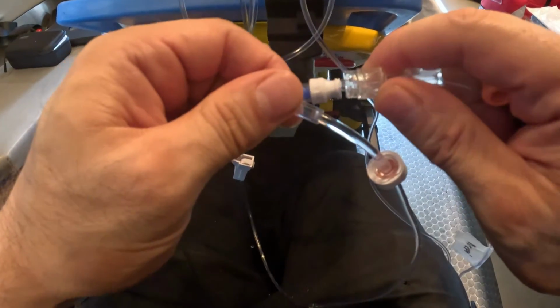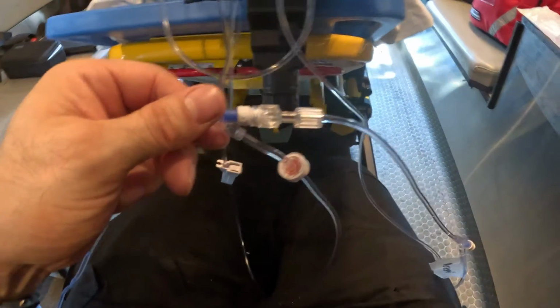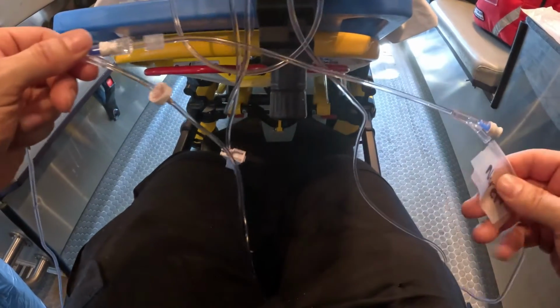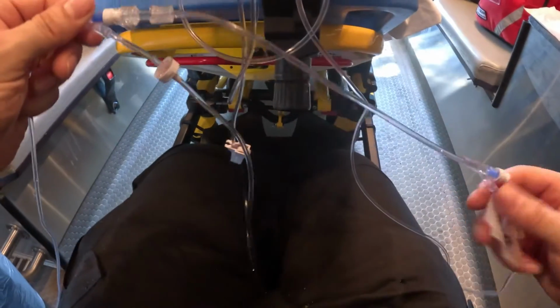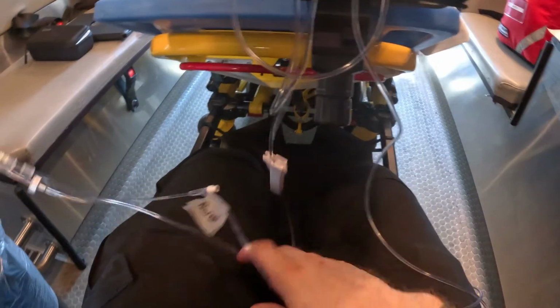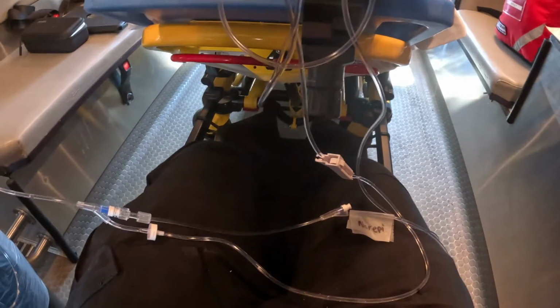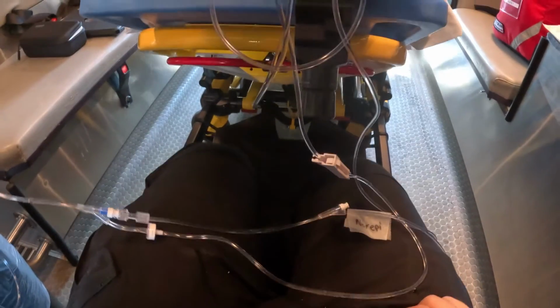So you're going to Y-site connect like this. So we just Y-site connected our pressors. They're usually going to be labeled, right? So label here. This is another Y-site if I needed to do a third pressor. This is another pressor that's coming out. So now I have two drugs going. Let's say they were norepi and dopamine. If let's say I had vaso, I had epi, again, you could also connect them to the Y-site and then check this app, the Micromedex, for compatibility.